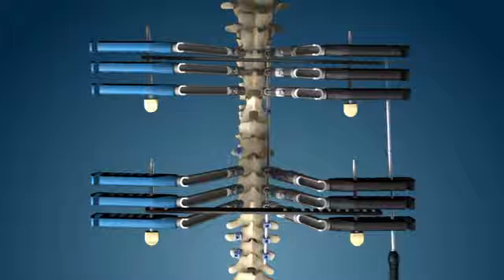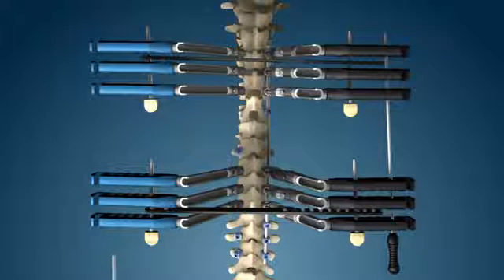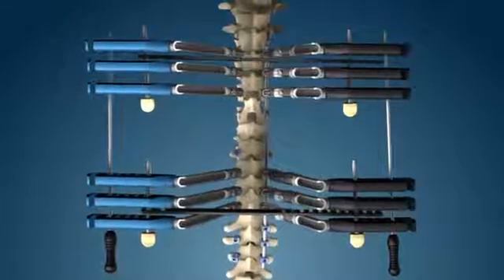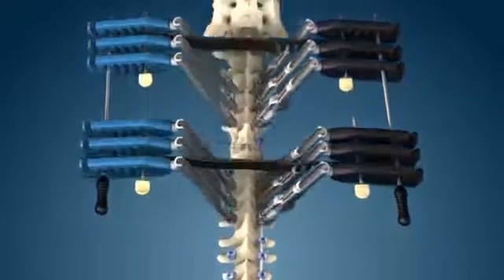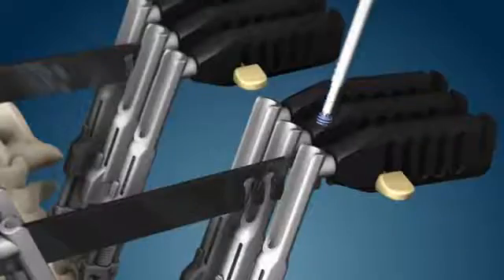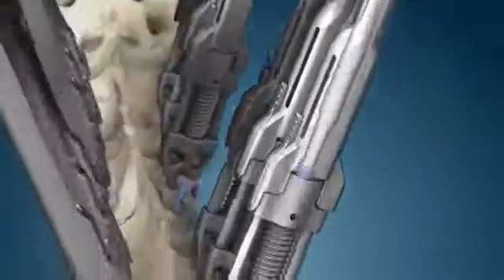Holding a slight overcorrection will account for elastic rebound in the construct when instruments are removed. Derotation helical flange plugs are inserted and tightened.